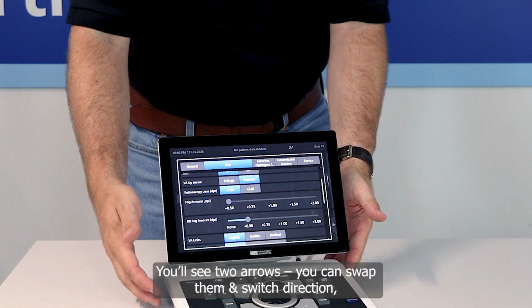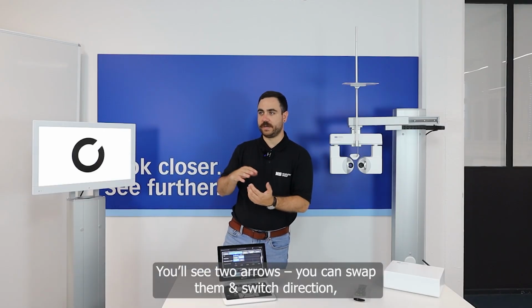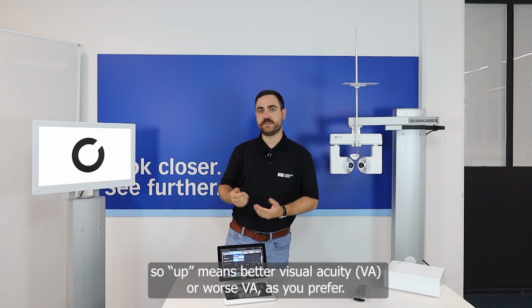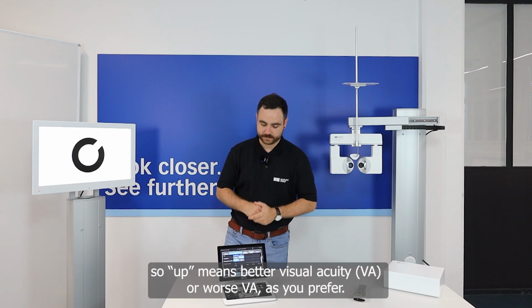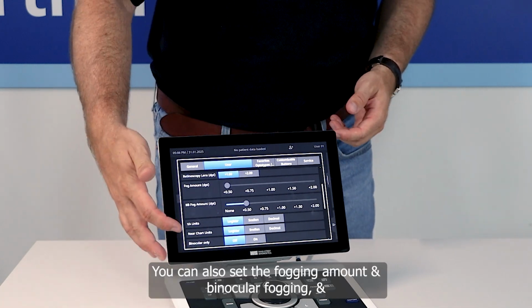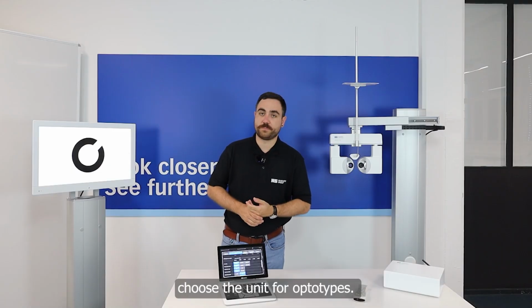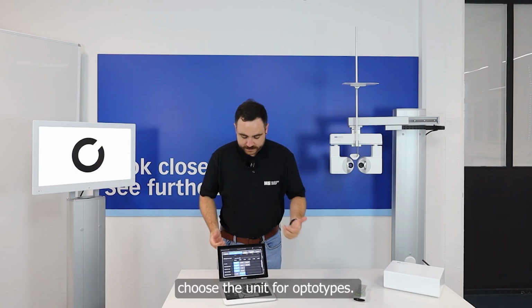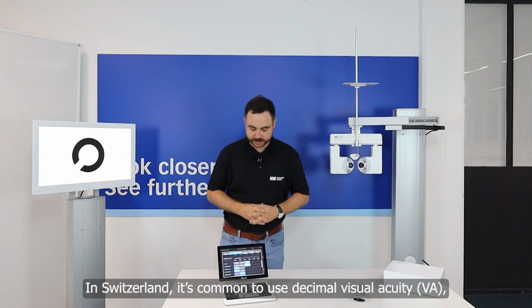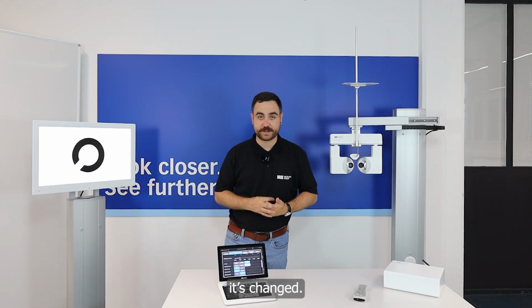You can see on it 2 arrows. You can change them, so you can switch whether up gives a better visus or a worse visus in the end. Also you can set the fog amount and the binocular fog, and which unit should be preferred for the optotypes. Here in Switzerland it's really common to use the decimal version, so we have to change the device, and you saw it directly here, we had to change.